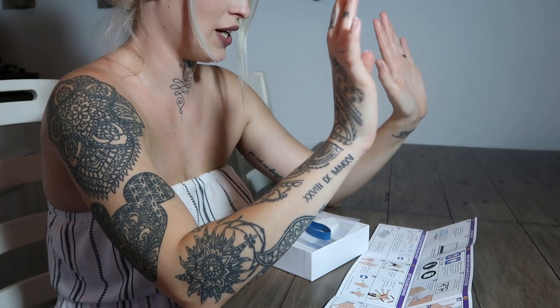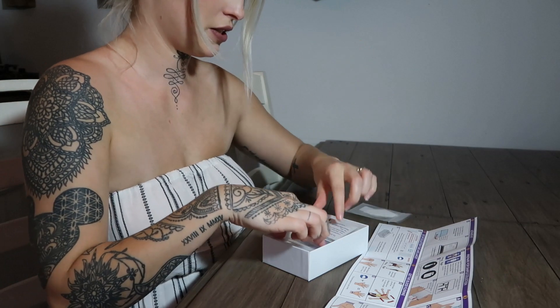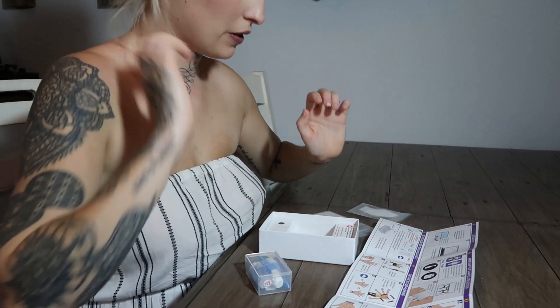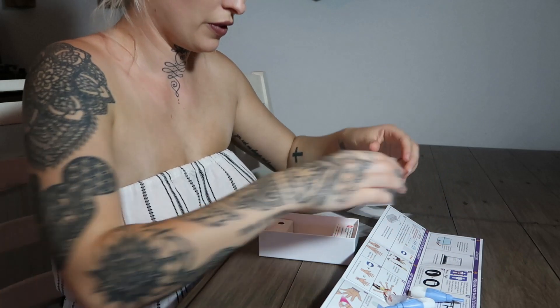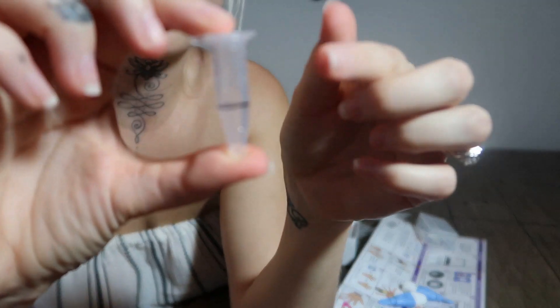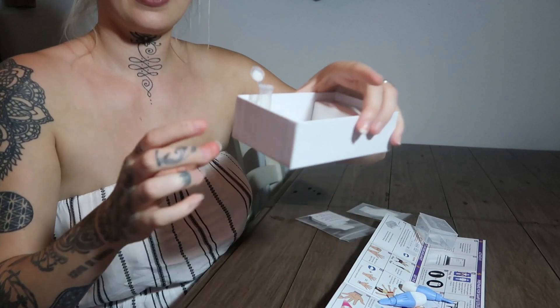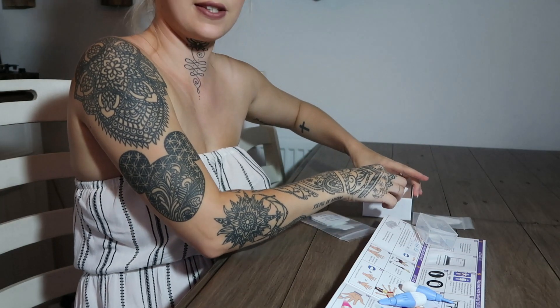Remove and place the following items on a clean surface. So we need the band, we need that, that, and that. So it says to open the lid - there's going to be liquid in the bottom of this vial and not to empty it because it's meant to be in there. So you open this - oh my god, I'm so scared - and you put it in here. There's a little hole and it sits in there nicely. So we're going to put it there and move it over here so you can see it.